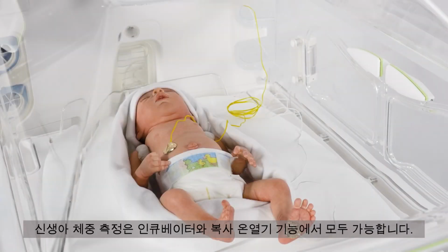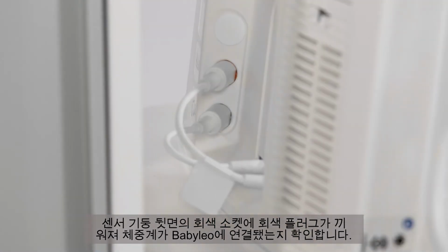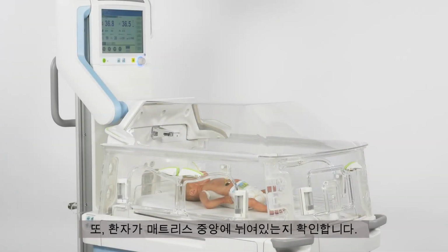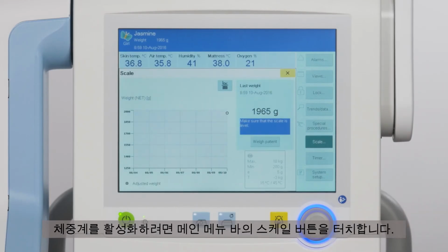Weighing of the baby can be done in both Incubator Operation and Radiant Warmer Operation. The scale is integrated in the bed support. Check that the scale is connected to Babyleo with a grey plug inserted into the grey socket at the rear of the sensor wall. Also, check that the patient is lying on the centre of the mattress. To activate the scale, touch the Scale button on the main menu bar.